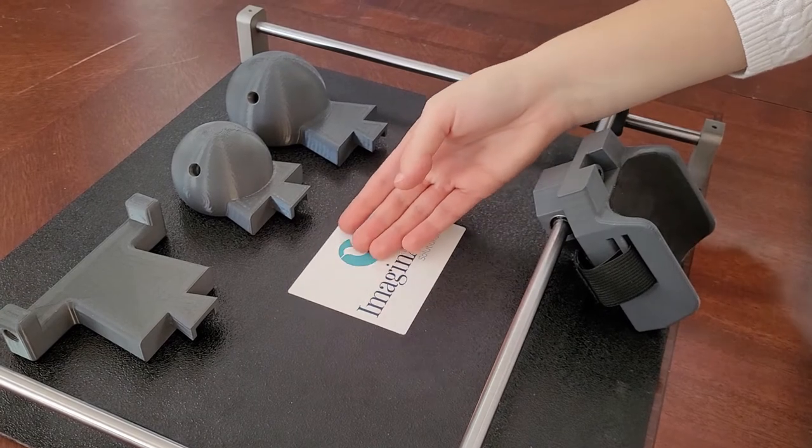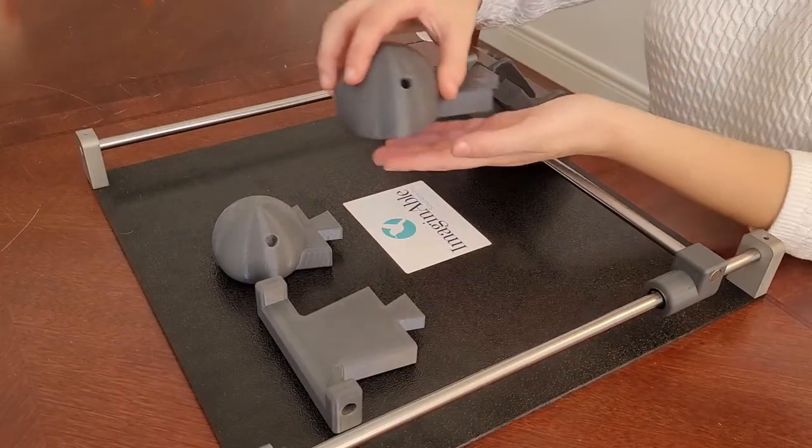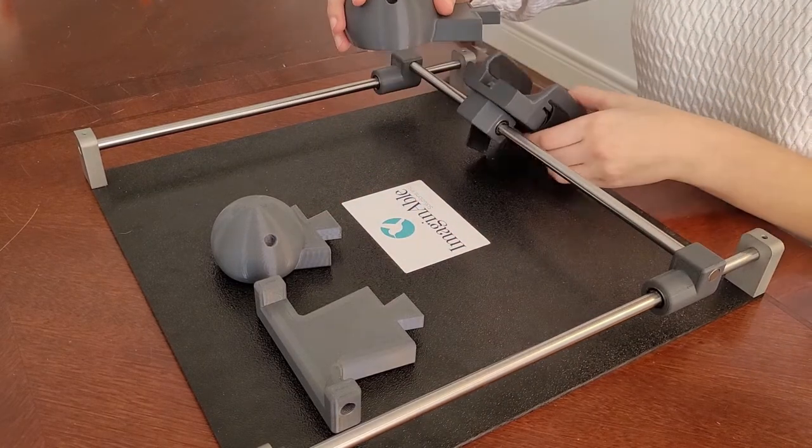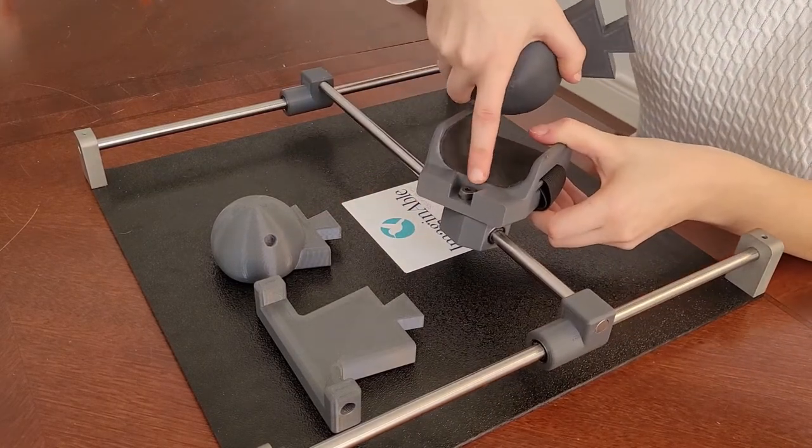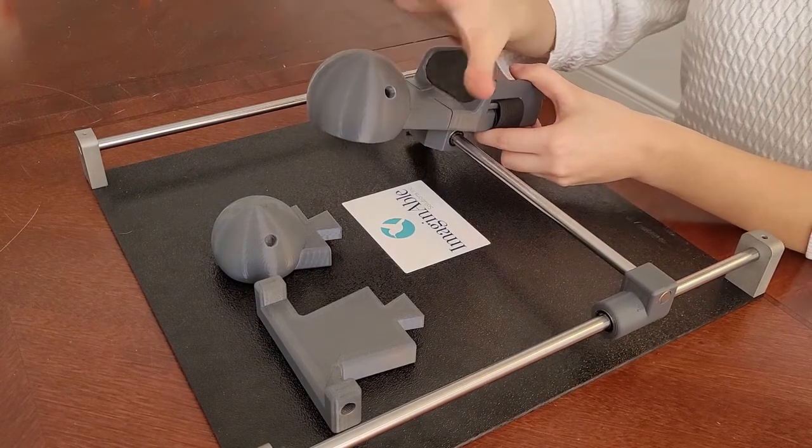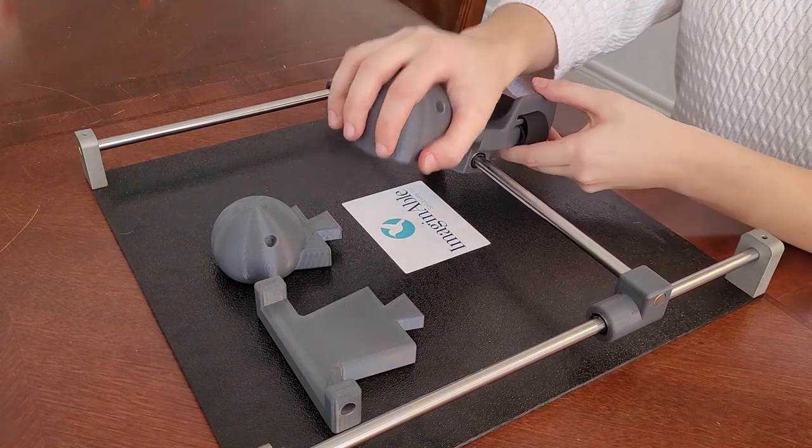Next, choose the handpiece that is most comfortable for you. Let's take a look at our first one. Notice that each handpiece has a dovetail end which corresponds to the slot on the wristpiece. Insert the dovetail end of the handpiece into the slot. Simply curl your fingers around the spherical shape. This large handpiece is most suitable for adults.